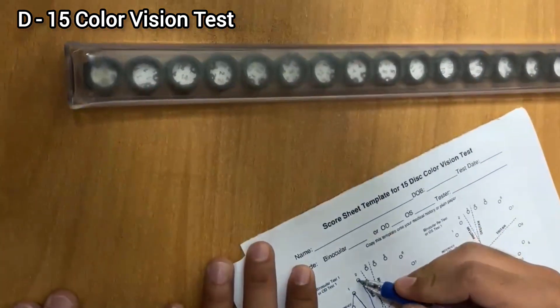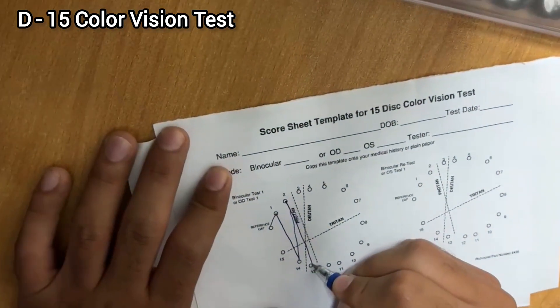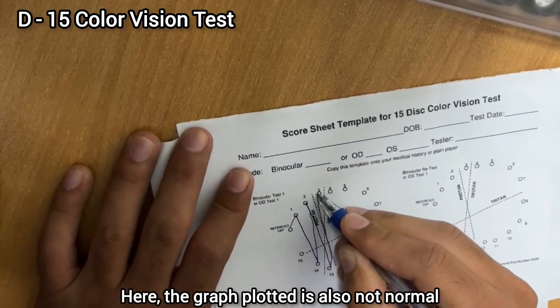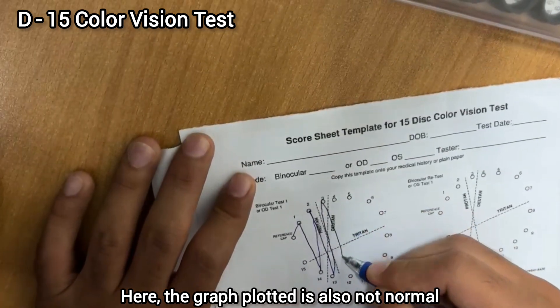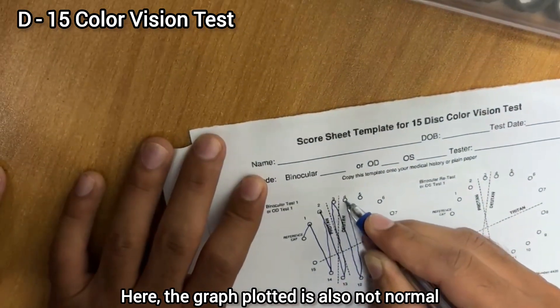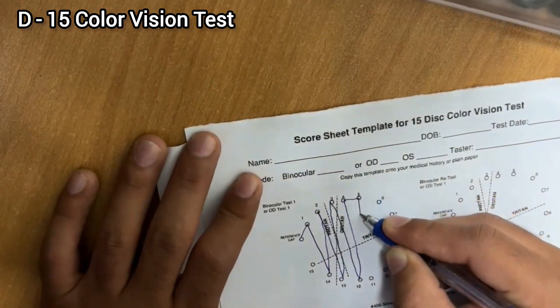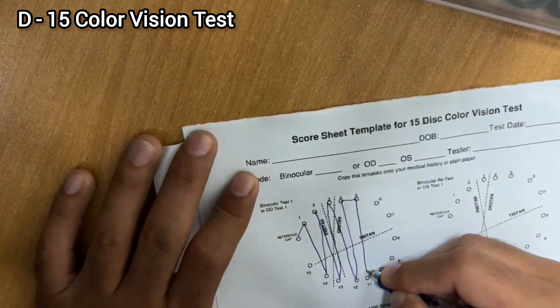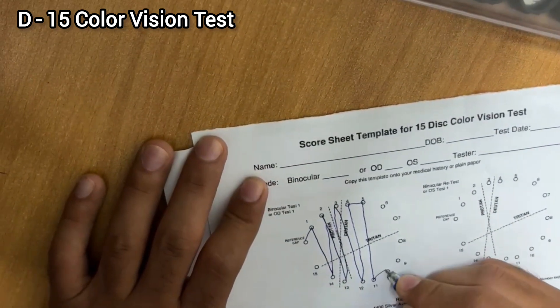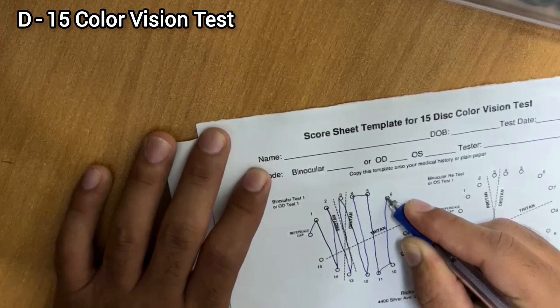While plotting the graph, you can see there are spikes — different spikes that are not in a regular arranged manner. It's not a good sequence and you can see these deviations of the lines. We are going to evaluate from these patterns whether the patient is red defective, green defective, or blue defective.